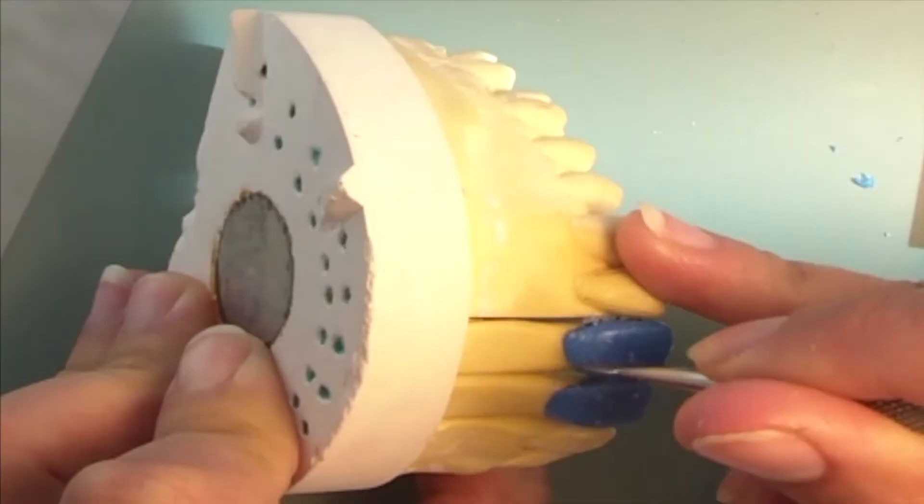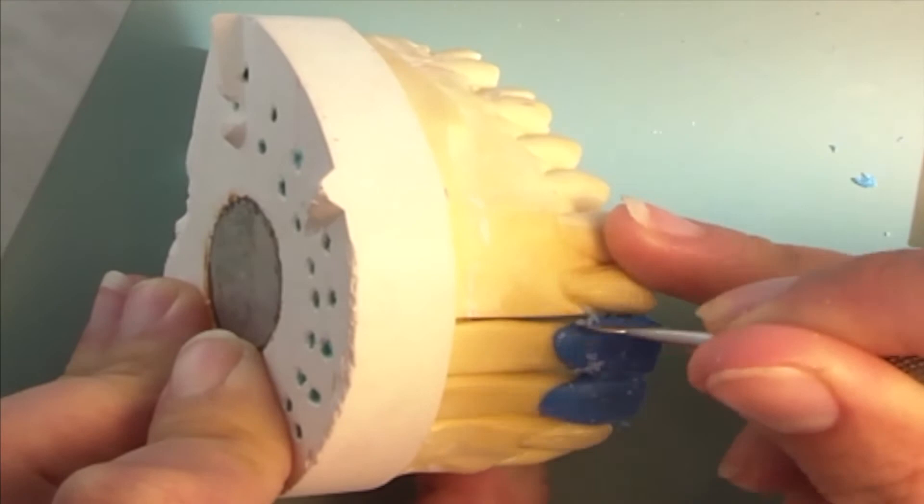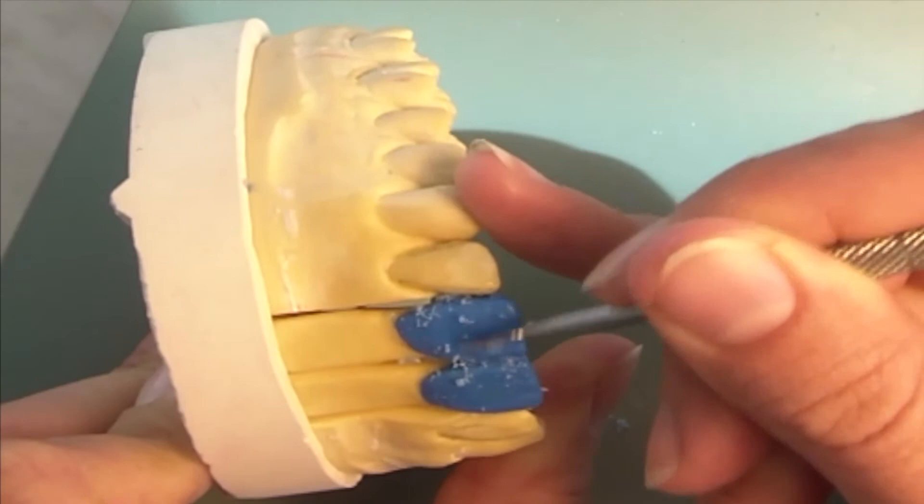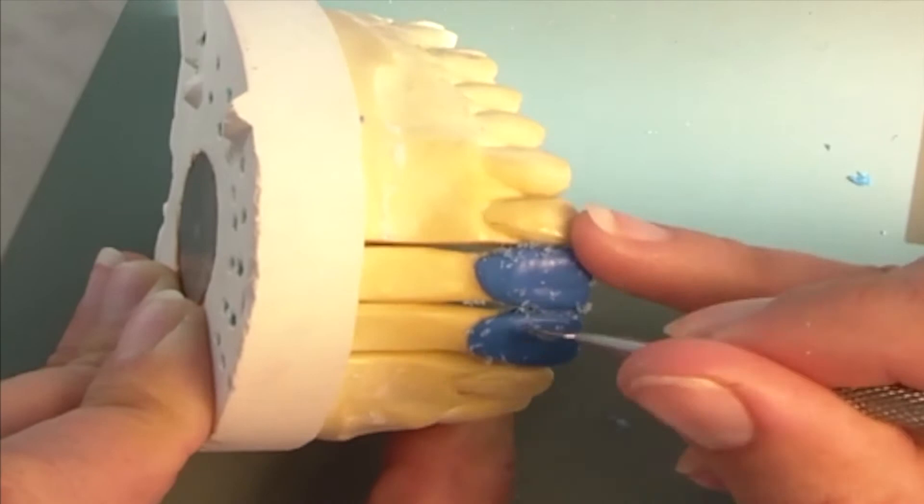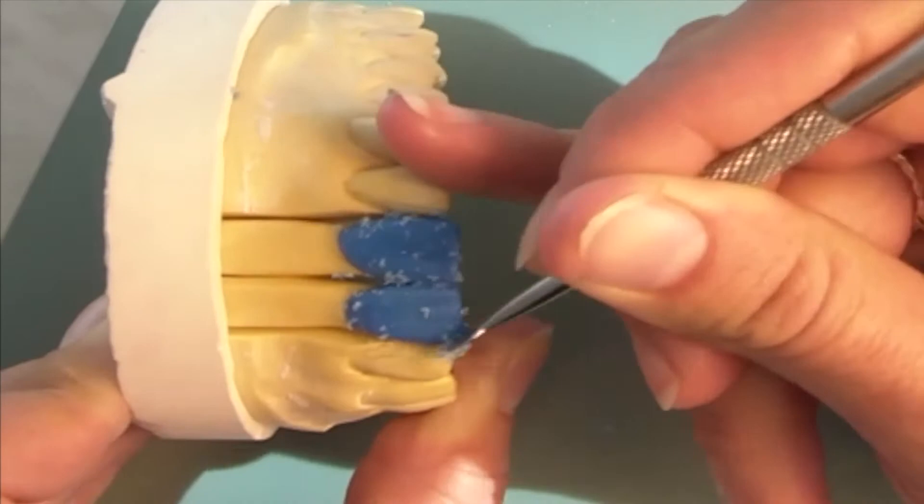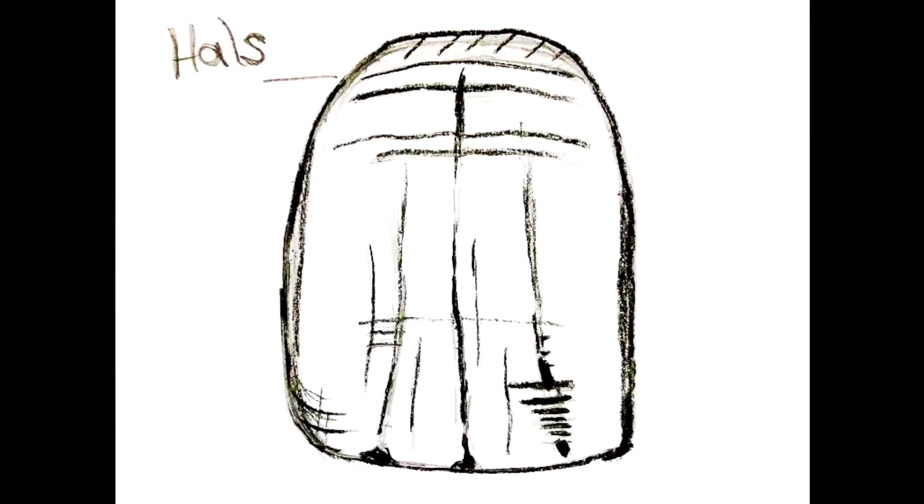All surface areas are shaped using a modeling instrument. Now I emphasize the characteristics of the crown with a surface structure.